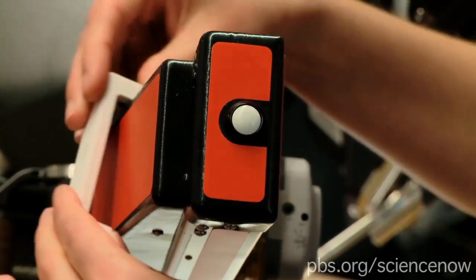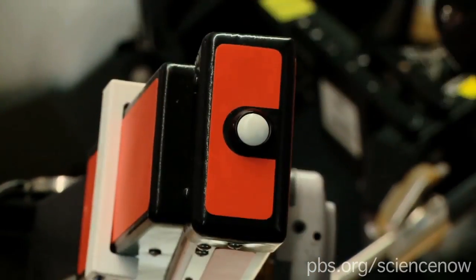So this stuff was already here. This is the existing surgical robot that you can buy off the shelf for $2 million. And all you've done is added this one little piece and that's all the sensing equipment it needs. Yeah. This costs about $20. So it's really cheap. Wow.